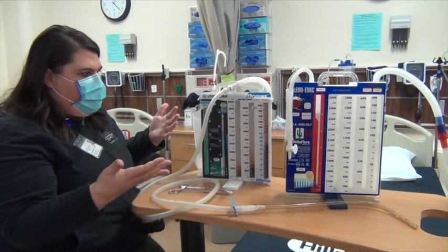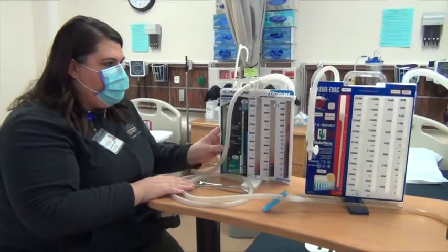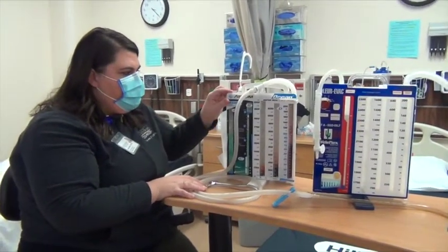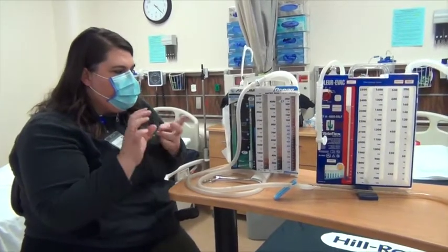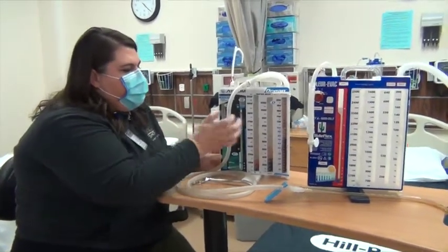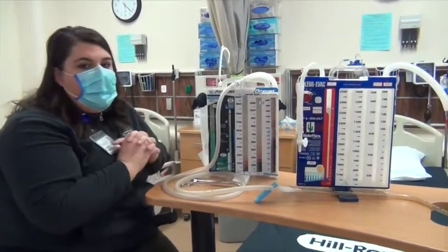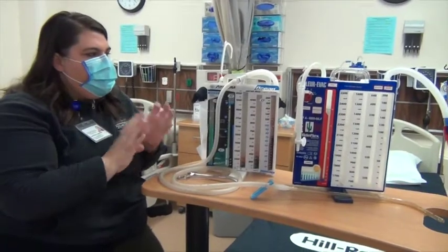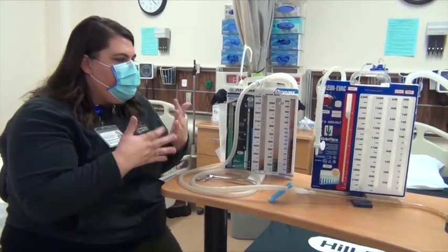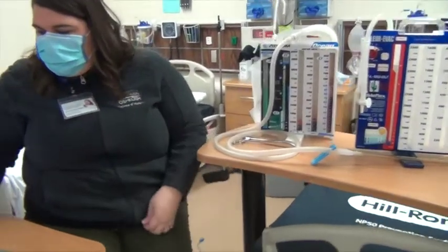So that's the chamber in a nutshell, as well as how you check for an air leak. Don't be intimidated by these. I think it's really easy. The concept of chest tubes, and it's kind of overwhelming. If you just break it down by the 3 chambers and what they do, and think of it just as a collection chamber, you're going to be just fine. Just make sure you really understand the negative pressure situation and the need for a chest tube, and I think the rest will kind of fall into place for you.